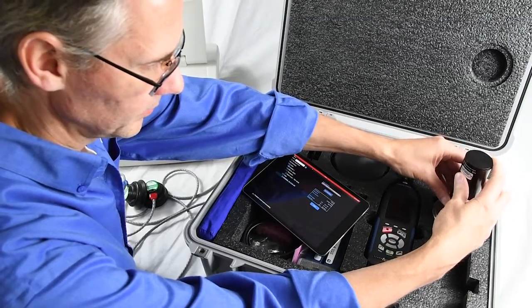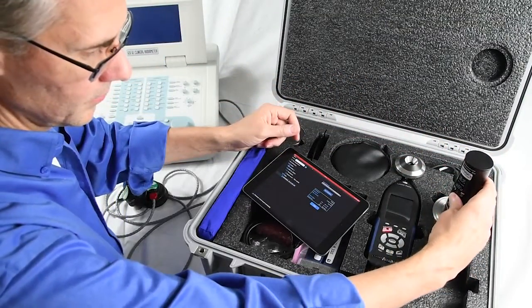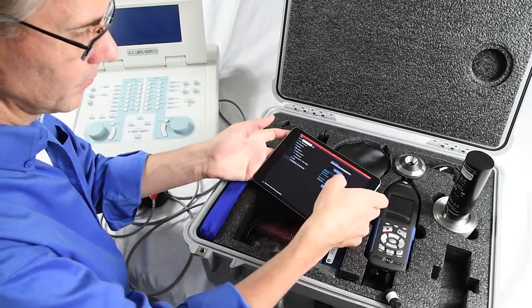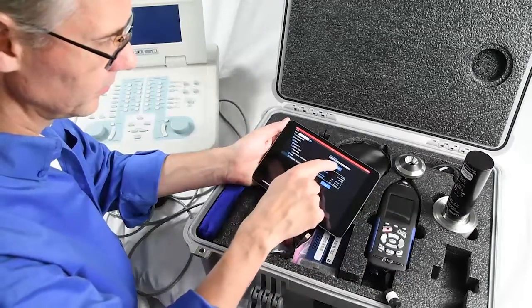Press the button to start the signal, which plays for 60 seconds. Then choose Calibrate on the display. Accept the calibration.